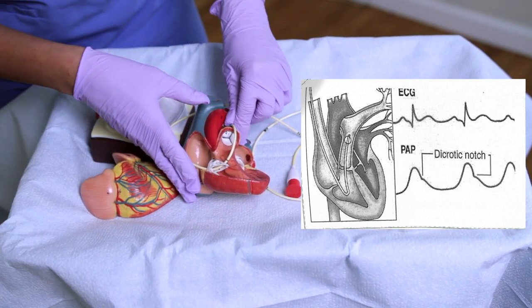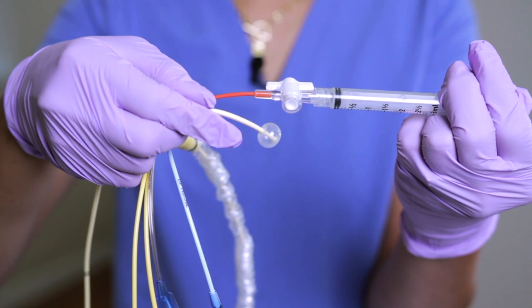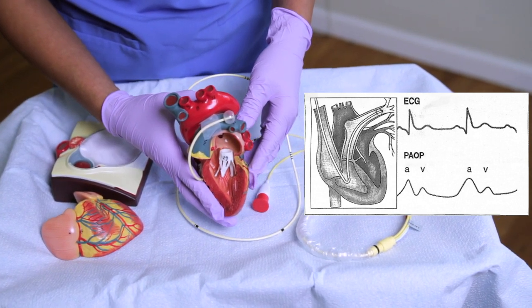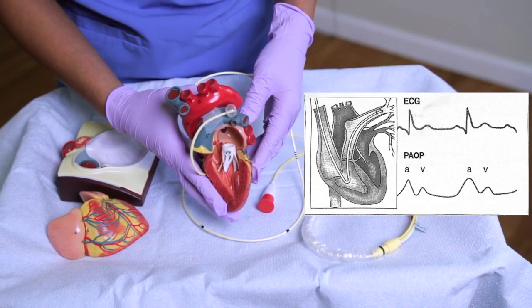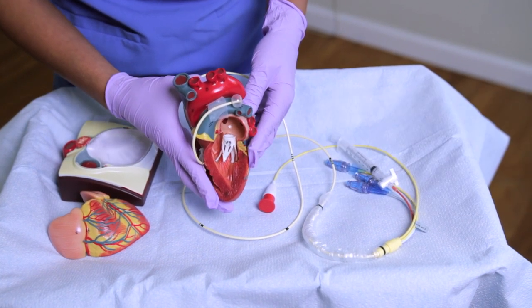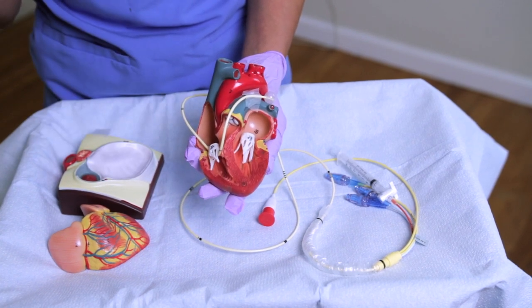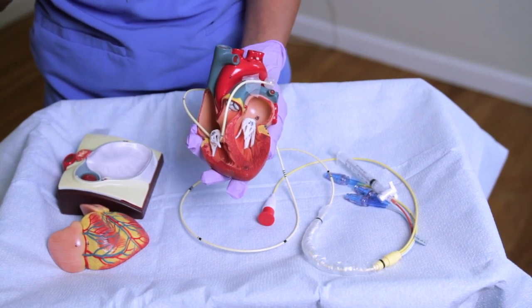The dicrotic notch is symbolic of pulmonic valve closure. As the balloon for the PA cath is inflated, it can't pass any further. The monitor will show the PAOP — a wedge pressure waveform with two small upright waves. The A wave indicates left ventricular end-diastolic pressure and the V wave indicates left atrial filling. When inflating the balloon it prevents perfusion while blocking pressure from the right ventricle, which is why we want to avoid doing this for prolonged periods and deflate the balloon when not in use.